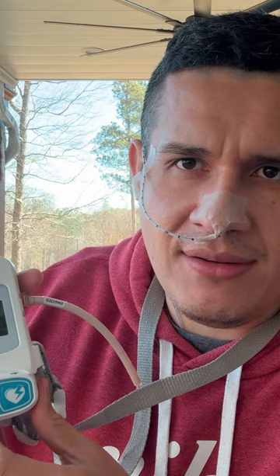It goes up through my shirt, into my nose and my throat. They have different options, as you guys can see. One of them is the pill — if you're taking a pill, which in this case I'm not, because I'm completely off any medication, because we want to catch the acid. That's the point of this exercise. Then you have a food button — whenever you start eating you click the button, whenever you're done eating you stop clicking. And then you have the lay down button, which is whenever you lay down or recline yourself.